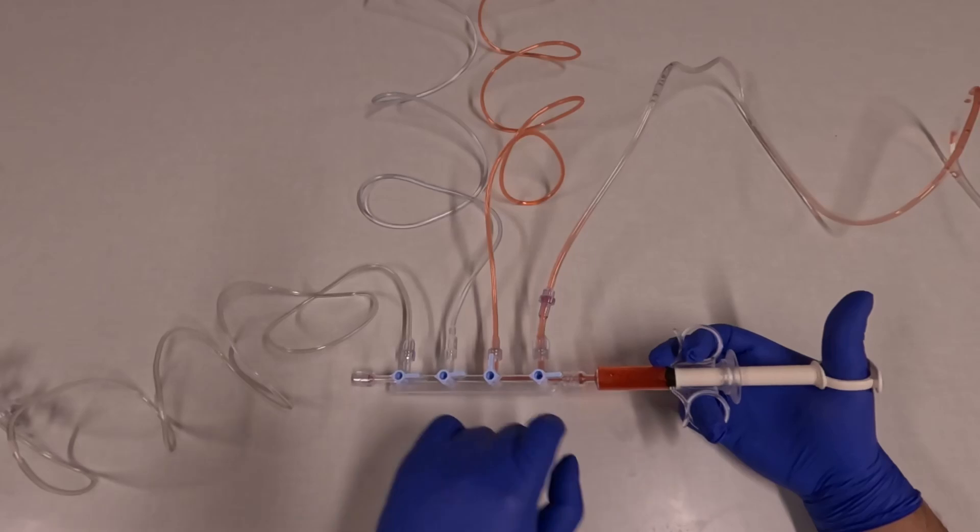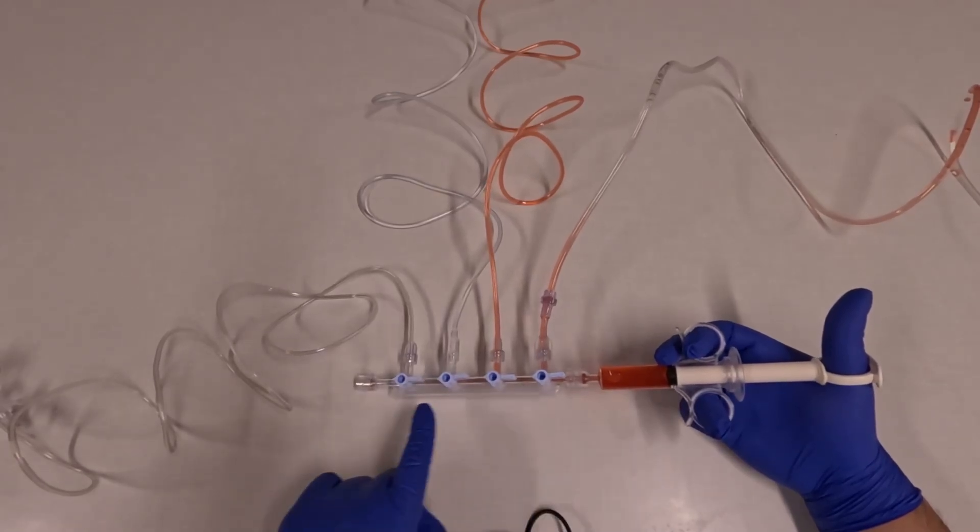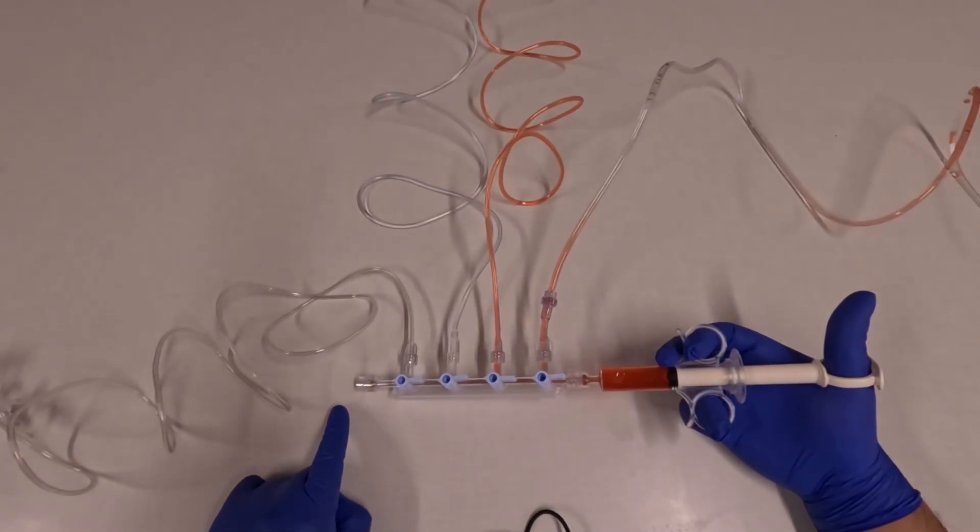Now here, I have the stopcock turned up to the contrast so I can pull back contrast. It's been dyed red just so you can see it better.